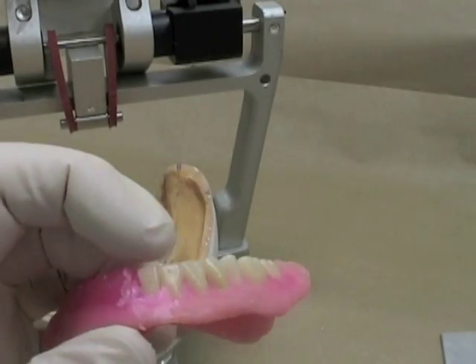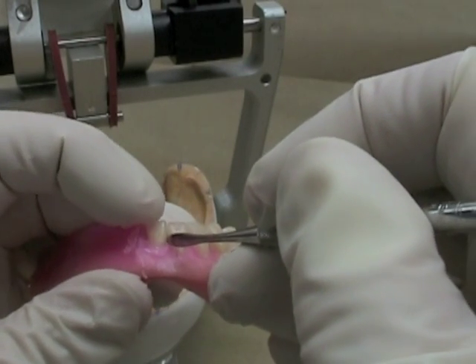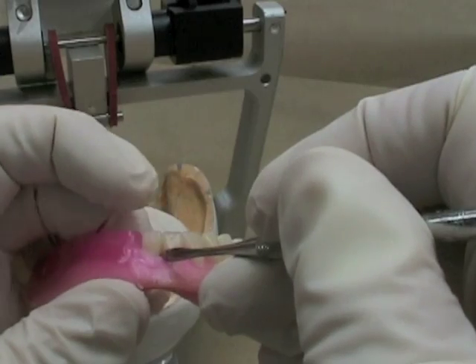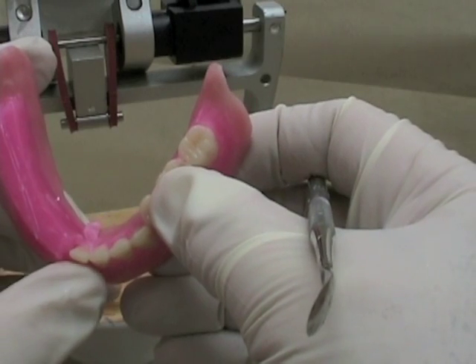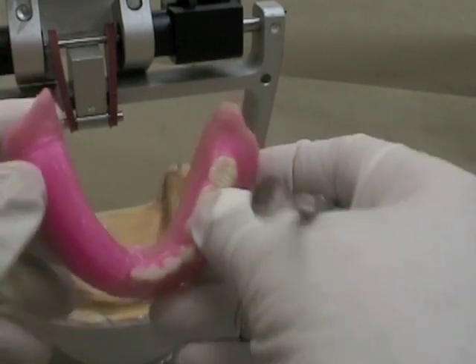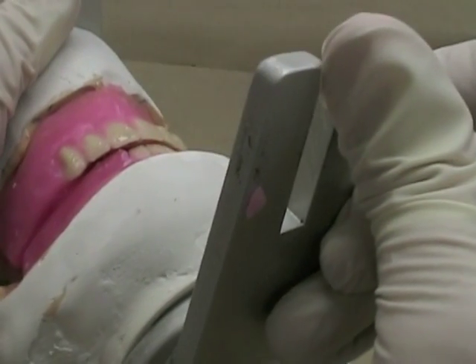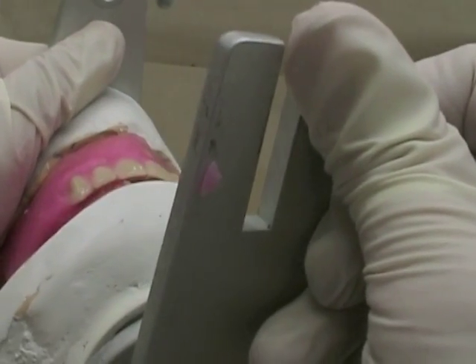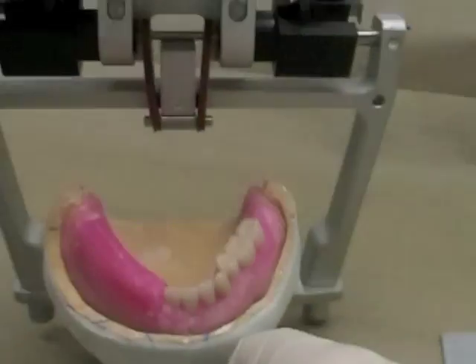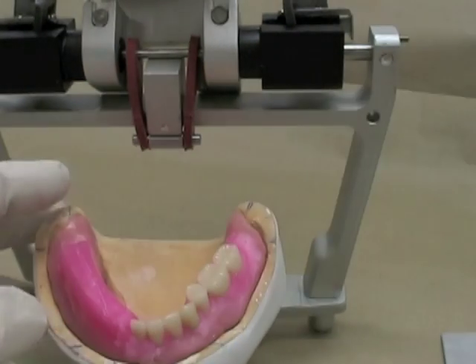I'll turn that back right side up and I'm going to watch to make sure that I get those incisal edges so they're relatively straight up and down. I'll look from the occlusal surface to check my angulation, then put that back on my mandibular rim to make sure I'm getting my overjet correct. That looks like maybe I'm starting to get a little bit too much, so I'll tip that slightly forward to reduce it and move on to my lateral.